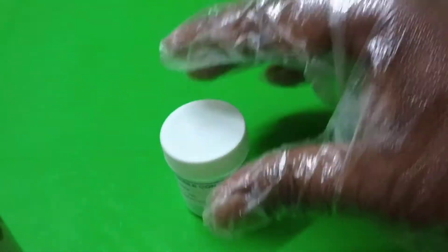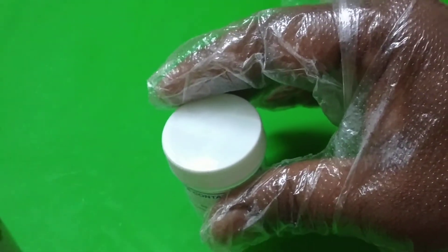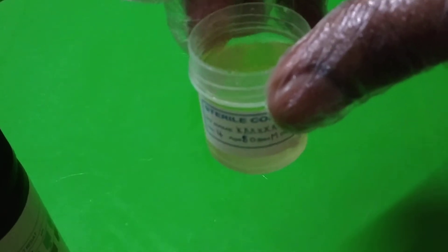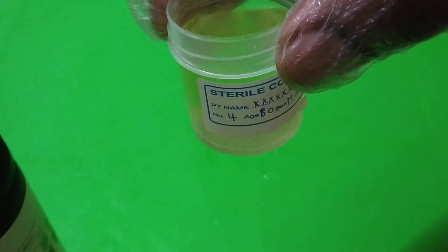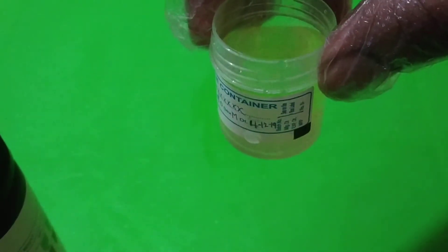We give this container to the patient and ask them to bring the urine sample inside this container. Welcome back friends — here is the sample of urine. The patient name is written as XXXX, sample number is 4, patient age is 50, sex is male, and the date is 4/12/2019.